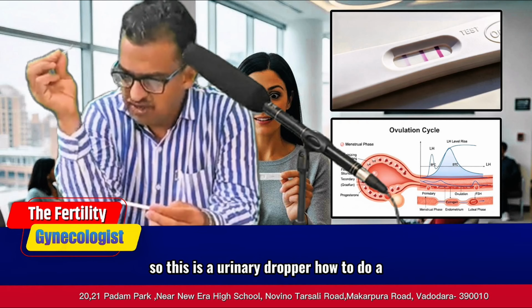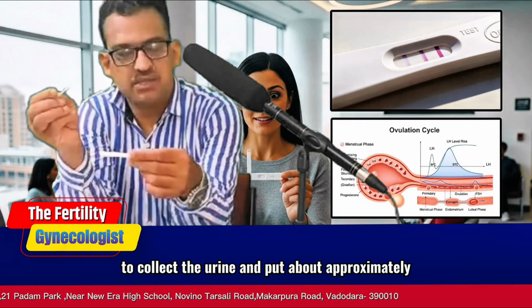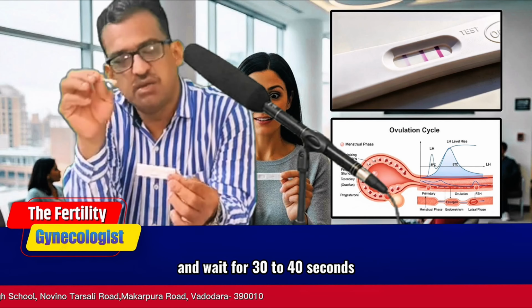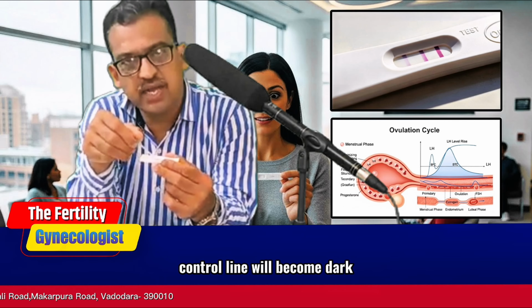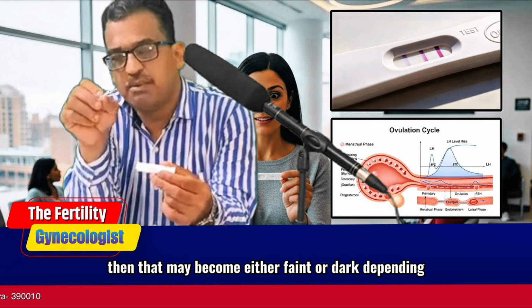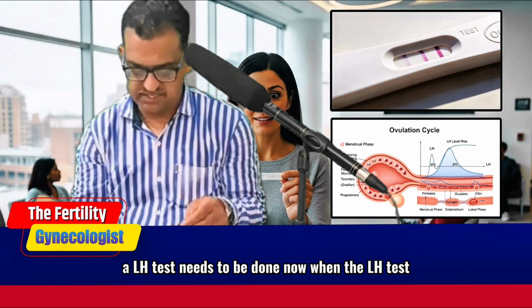How to do an ovulation test kit? Normally we tell the patients to collect the urine and put approximately half ml to 1 ml of urine in this well and wait for 30 to 40 seconds. After 30 to 40 seconds, the control line will become dark, and the test line, if LH is present in urine, may become either faint or dark depending upon the amount of LH present. So this is how an LH test needs to be done.